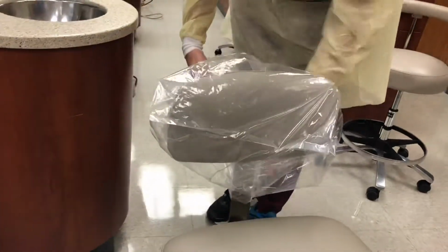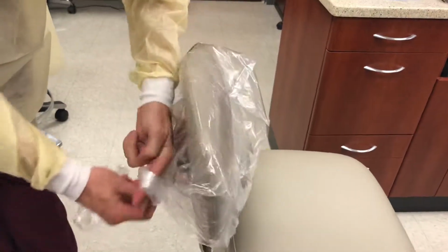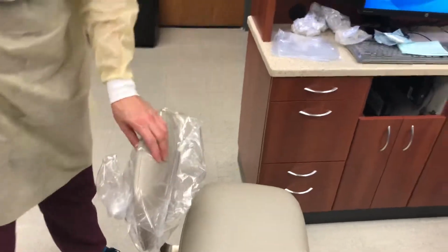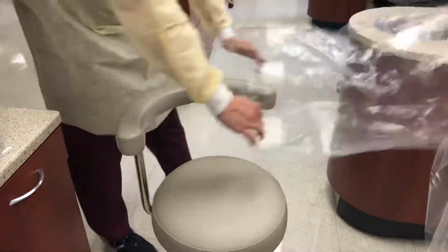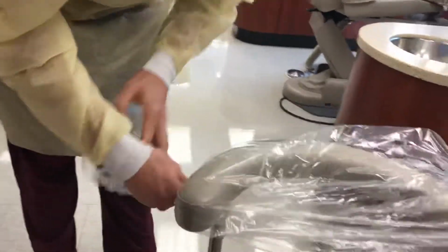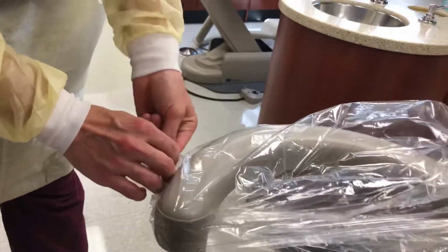Notice how you went from the side. You can do that or the top, and you will try to get as much air out. And then just do a simple slight knot. If you keep a little tail up, it's a lot easier for tear down. There's only one way to place for the assistant arm, since you have a pole on one side. Again, trying to get air out as much as possible, doing a little twist, loose knot, keeping a little tail up so it will make unit breakdown so much easier.